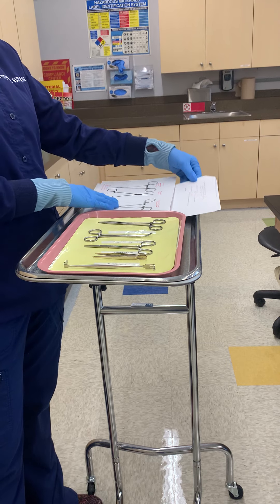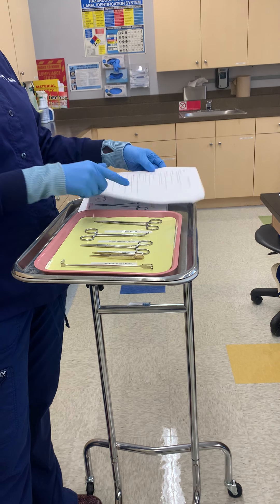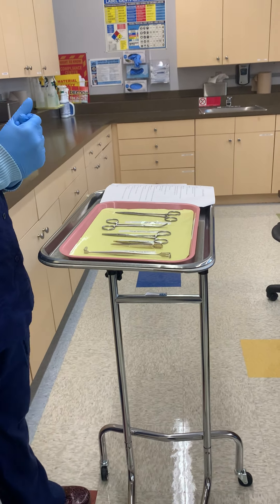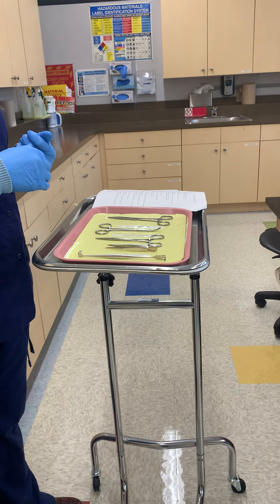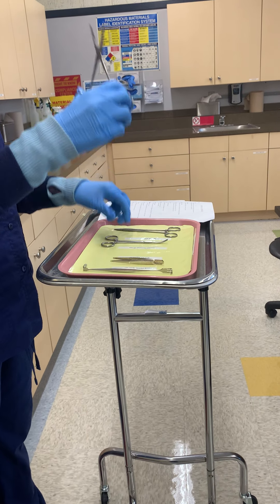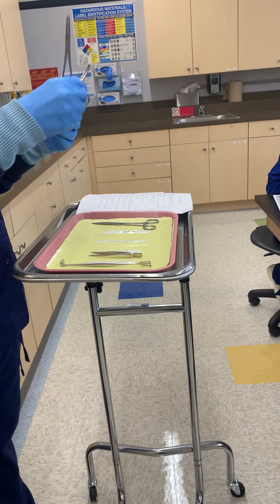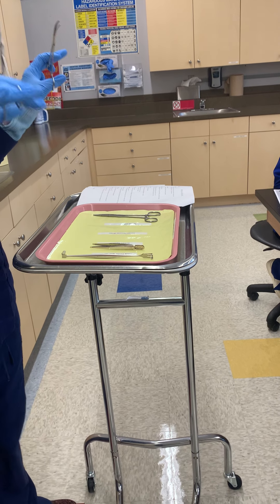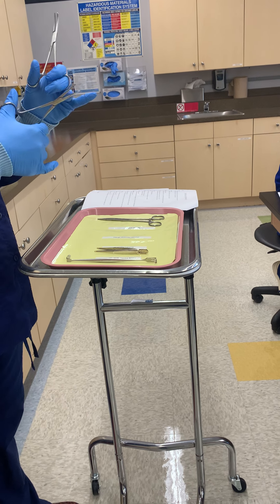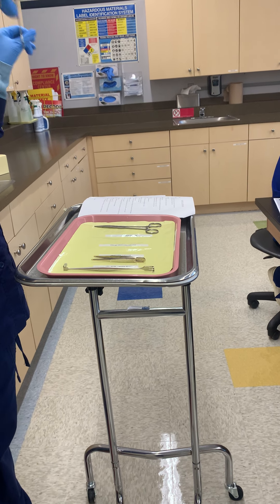All hemostats are used to stop the flow of blood. They're meant to clamp off a vessel. We have the straight hemostat and the curved hemostat. Hemostats kind of look like scissors, but they don't have a cutting edge, and they lock into place.